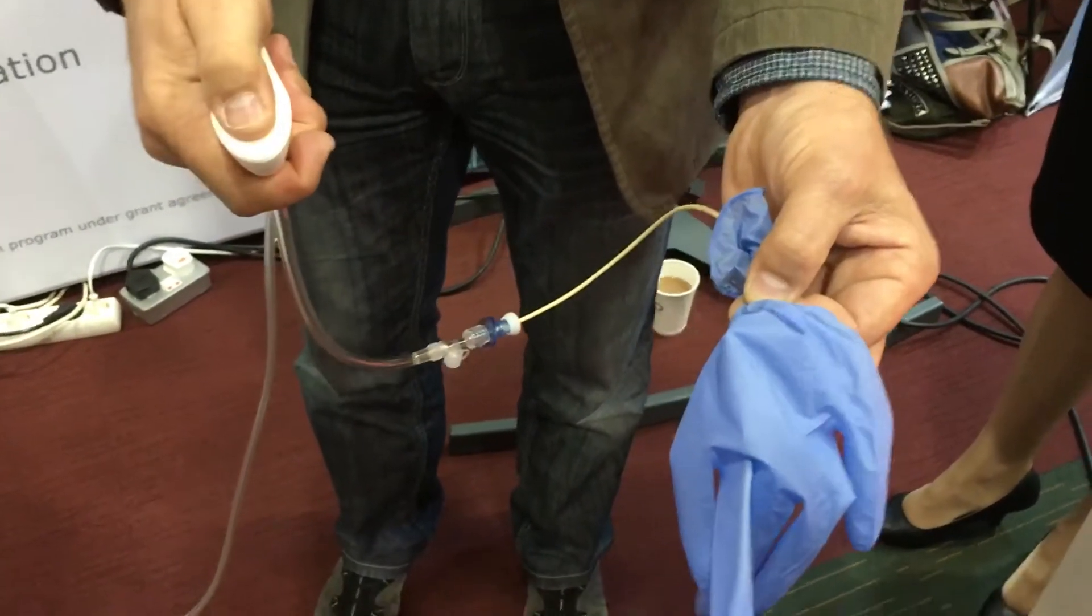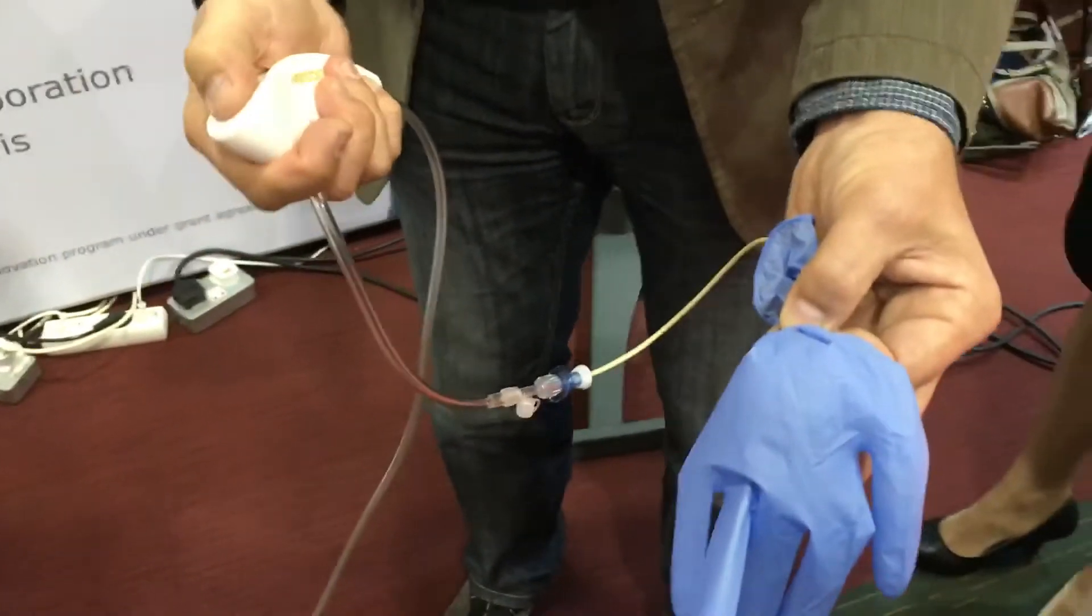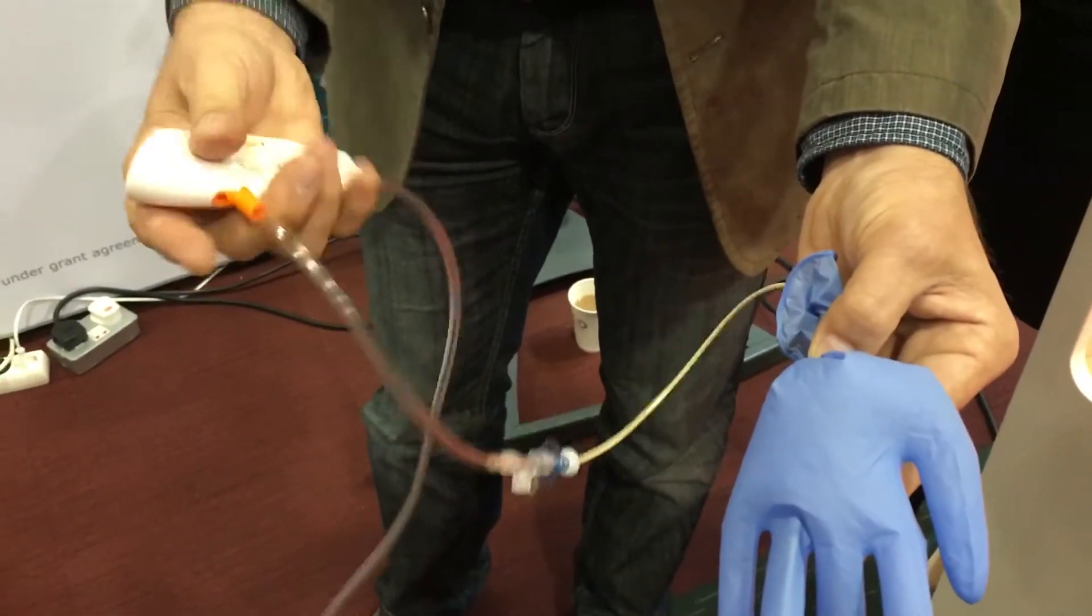So I guess the keyword is the concept of active deflation here, right? And you see, the device is activated by occluding this.